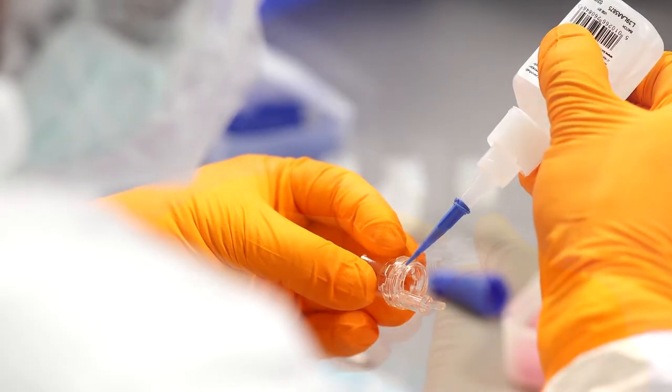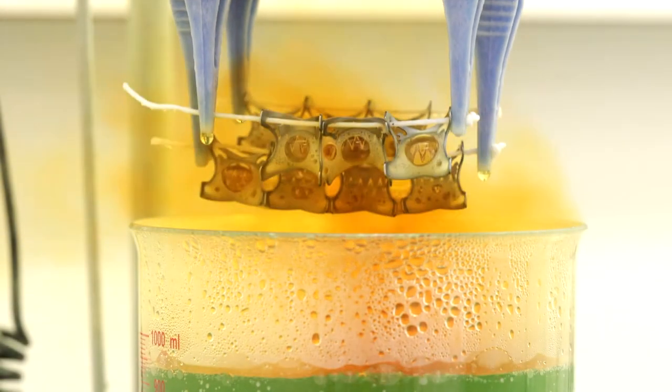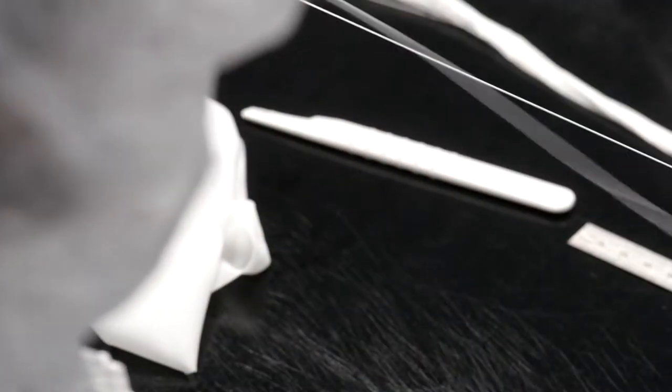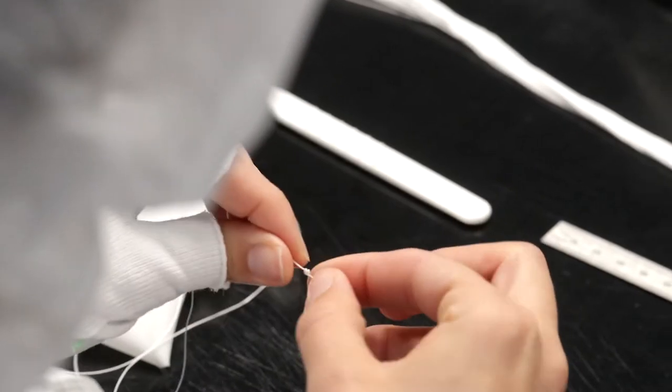3,500 products are manufactured monthly in our 400 square meter clean room area. 60 kilograms of Nitinol are used per year and brought into shape. The thread length of all OTSC systems sold could easily reach a satellite in orbit.